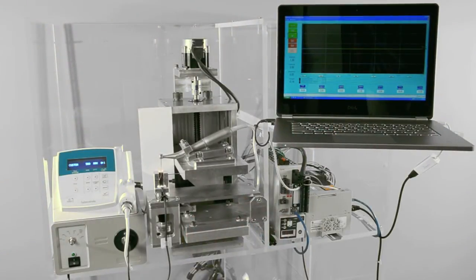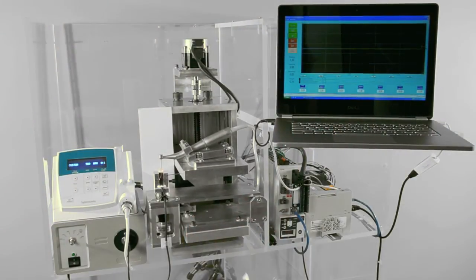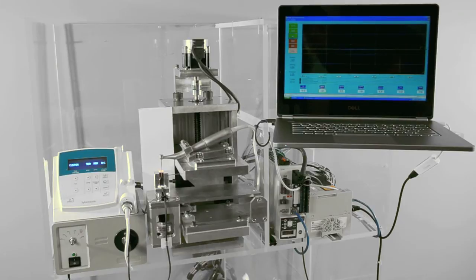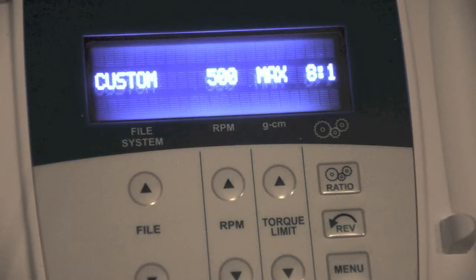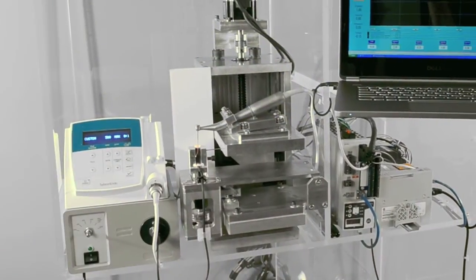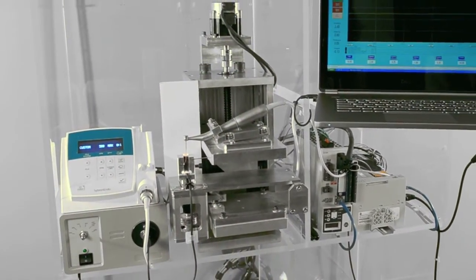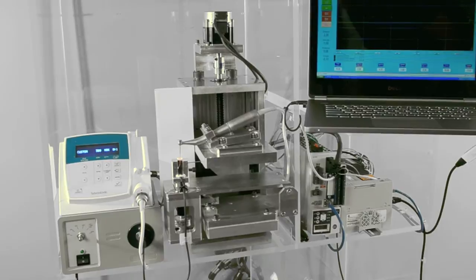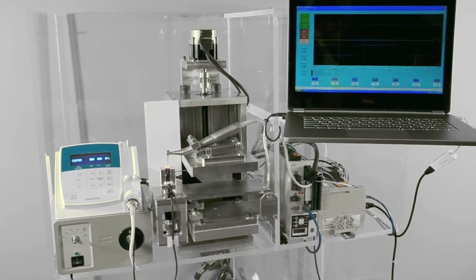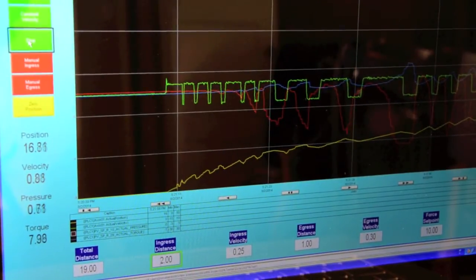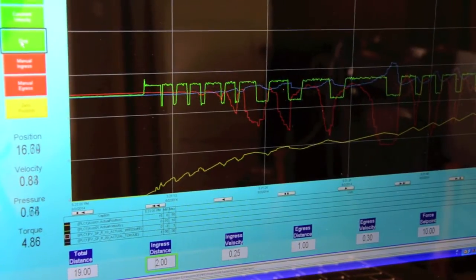We have designed a computer-controlled clinical simulator for this purpose. With it, we can easily set parameters to duplicate virtually any instrumentation technique. These include speed of rotation and the depth of ingress and egress into the canal over time, providing much more meaningful information than can be found using more narrowly defined specifications.